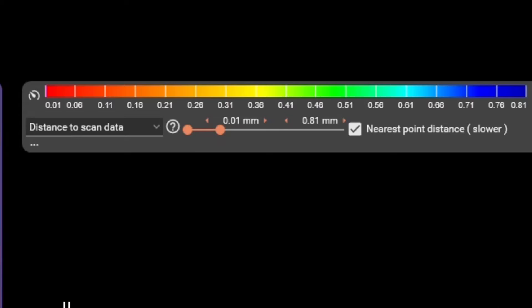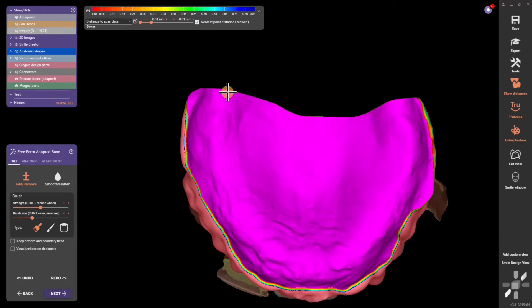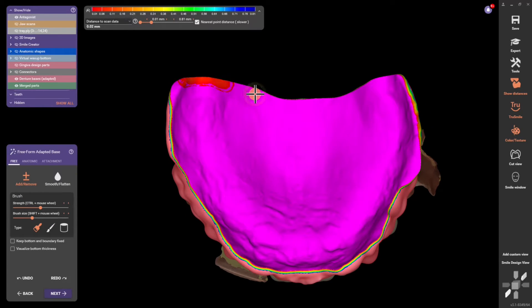Create a custom scale from 10 microns all the way to 800. We're going to add this pressure starting with the distal-most region of our denture — the vibrating line — and create that pressure specifically on the palate to create a better border seal of your denture, prevent food impaction, and also decrease the gag reflex.